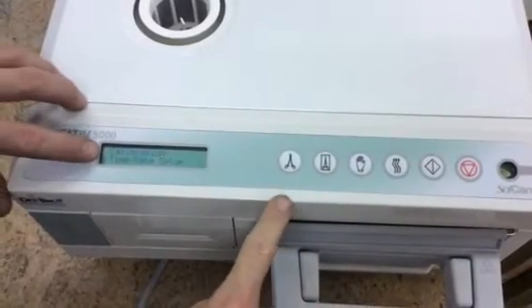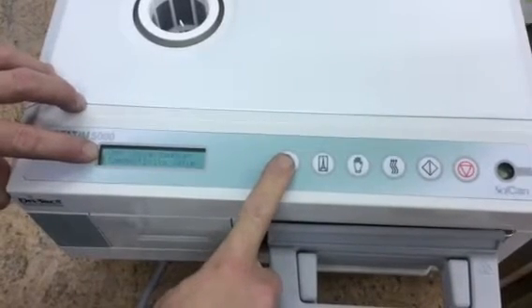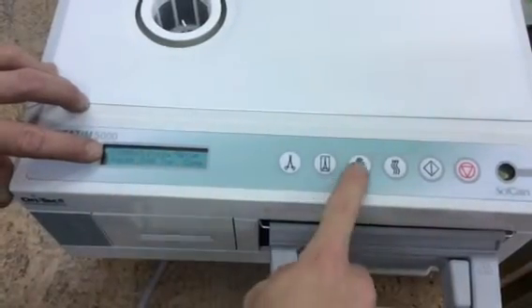Then you're going to see where there's an arrow on calibration — this one goes up, I think. We're going to go to conductivity setup and you're going to hit the glove.